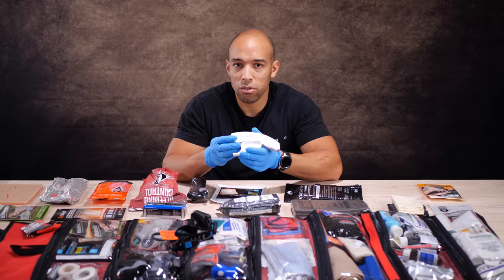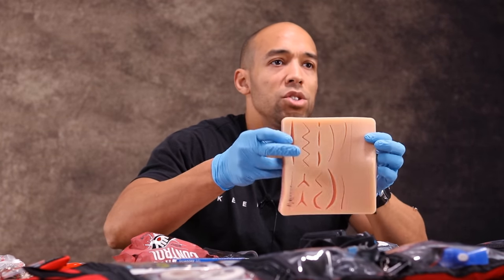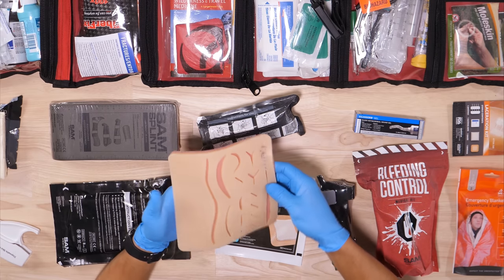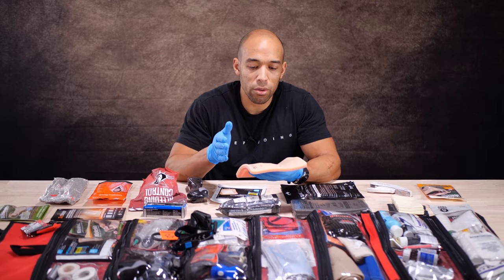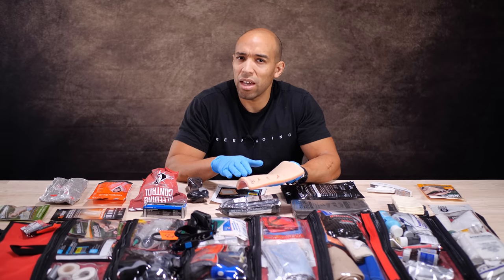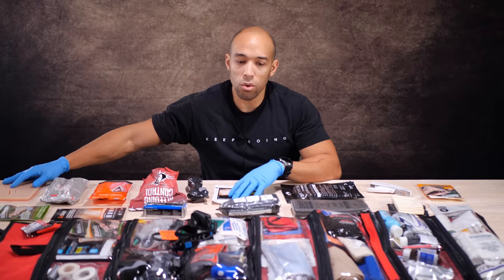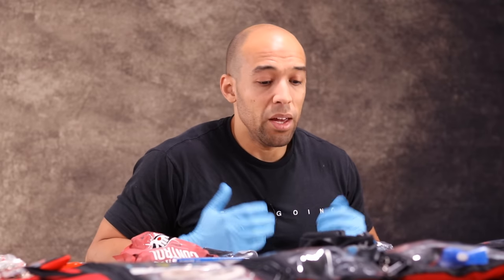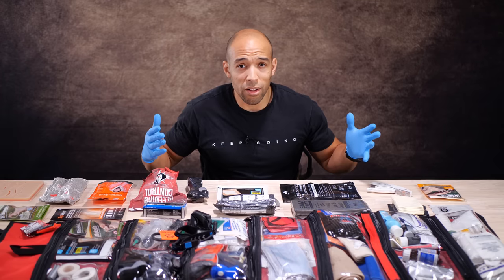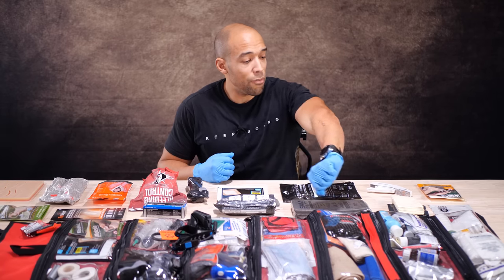The skin stapler is a good substitute for sutures, but we're also going to talk about a more non-invasive suture option. You can of course get sutures — I've demonstrated the suture kit on this channel before, you can buy them on Amazon. It gives you a platform to practice suturing. I think you only learn suturing at the level of nurse practitioner and beyond, so it's a very sophisticated skill. The only reason I introduce it is because we're talking about prepping — what to do when help is never coming.